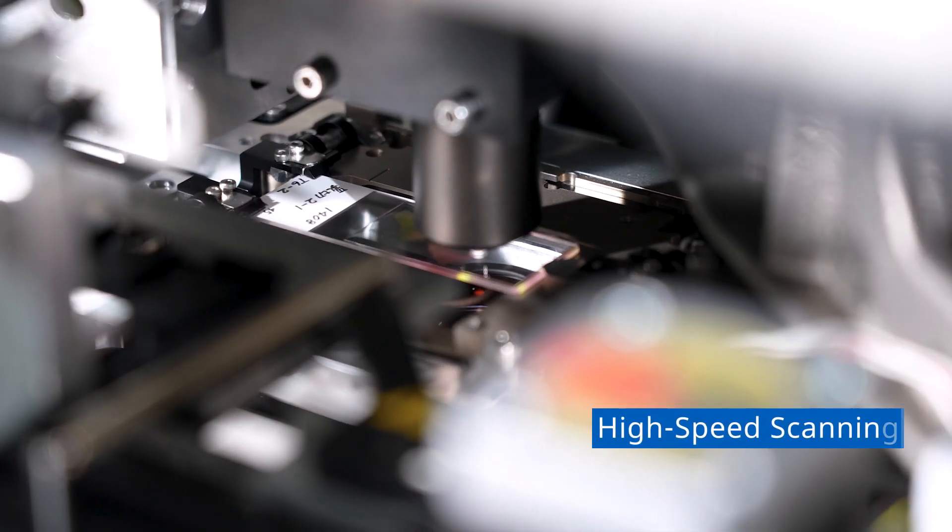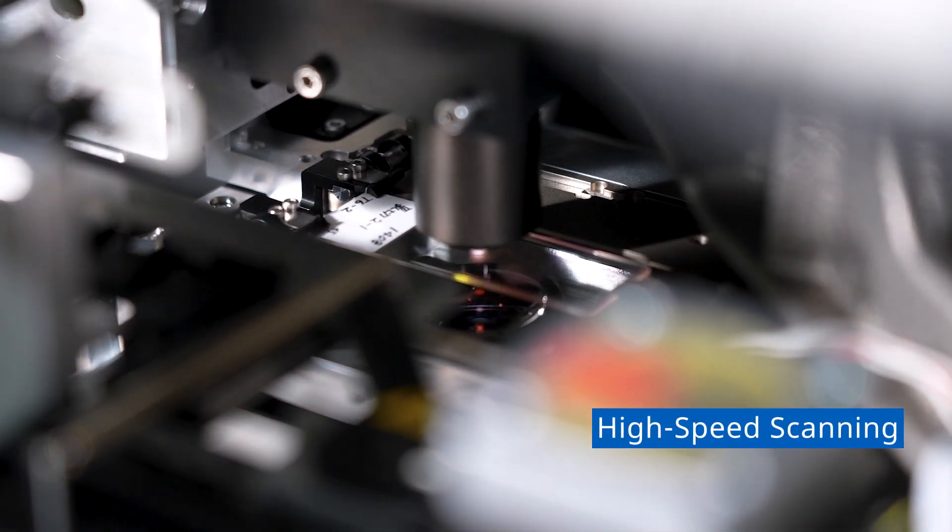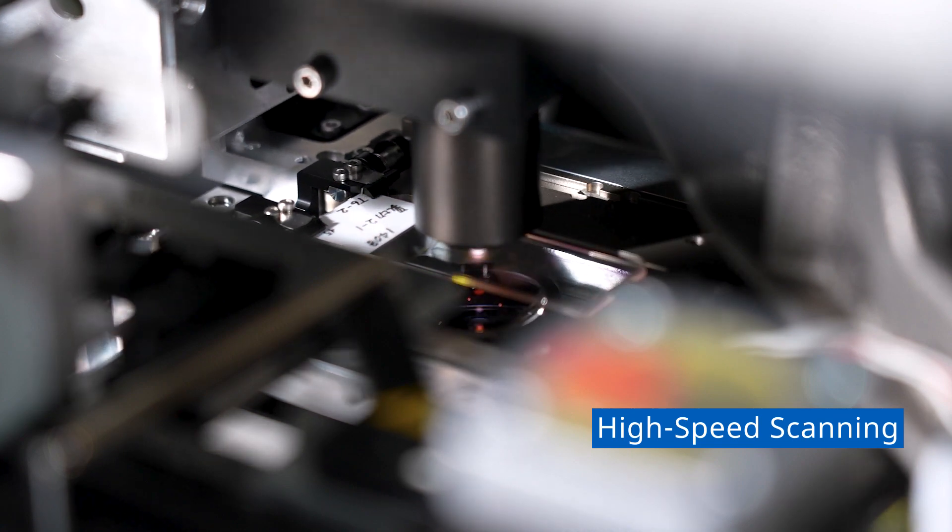The scanner's fast, more than 80 slides per hour scan speed enables slides to be quickly digitized for faster delivery to the pathologist.